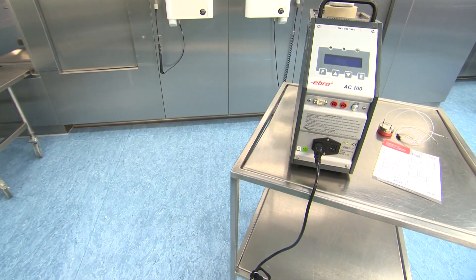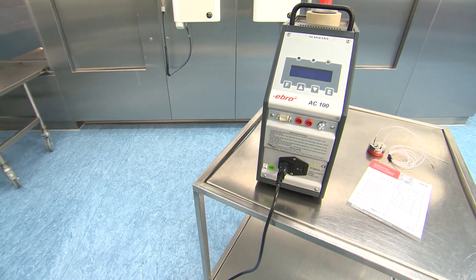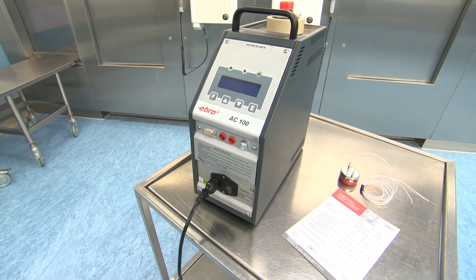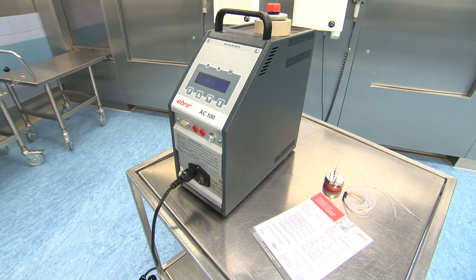In order for it to be ensured that the data loggers are functioning with the defined degree of precision, the data loggers must be calibrated annually.